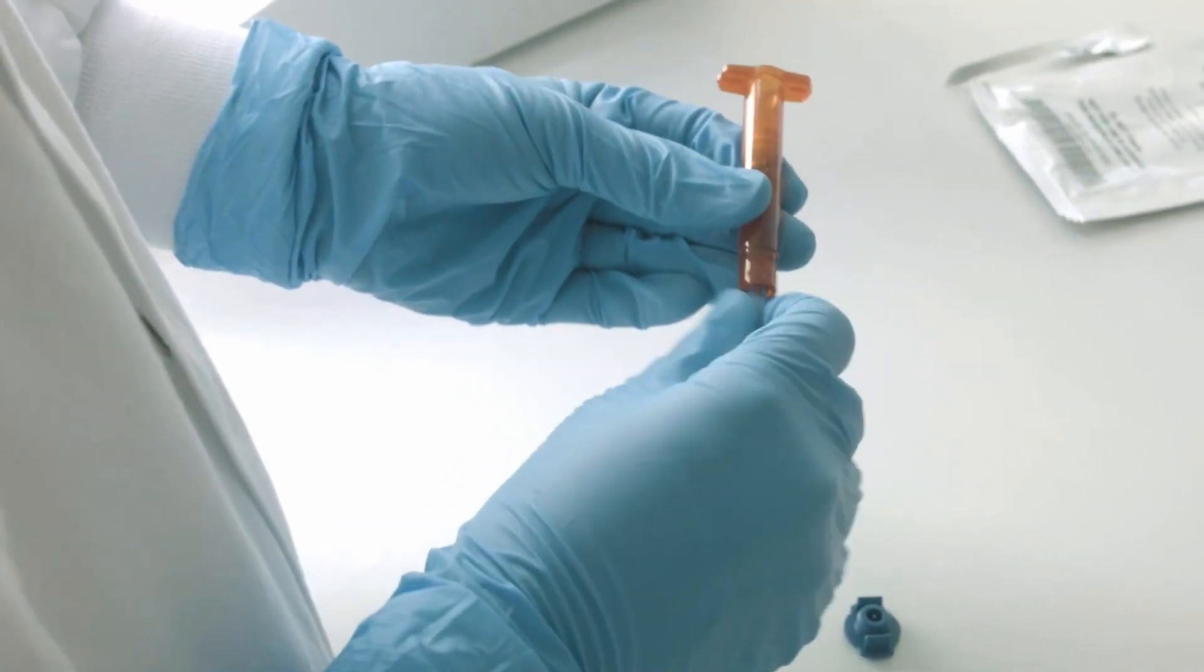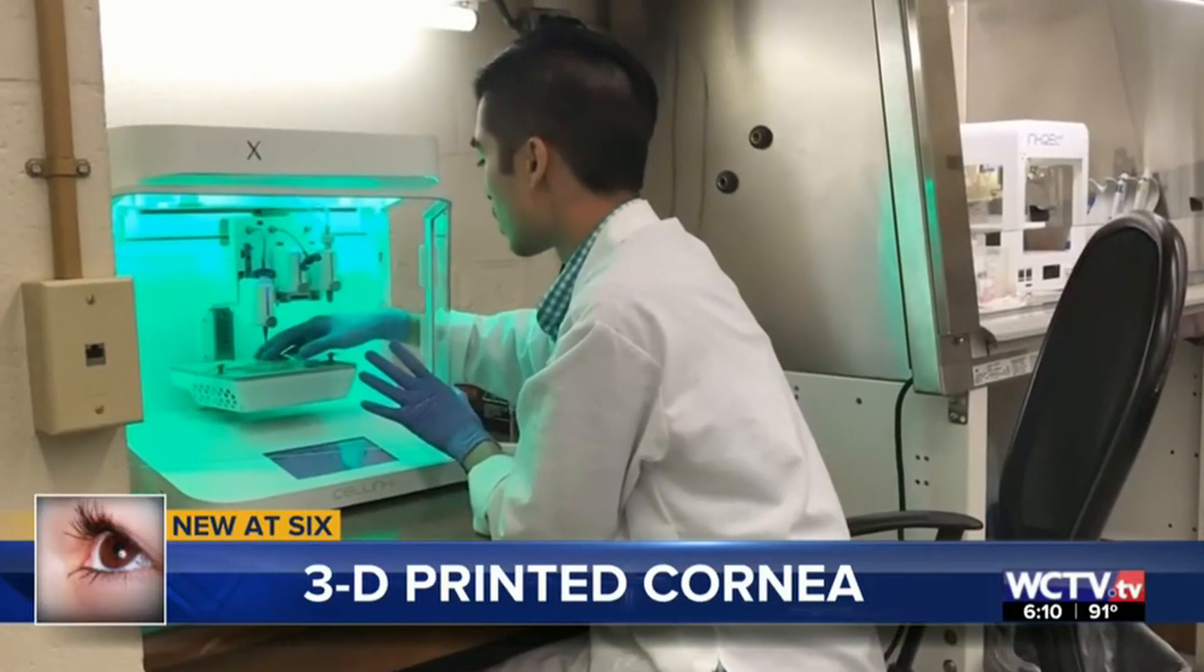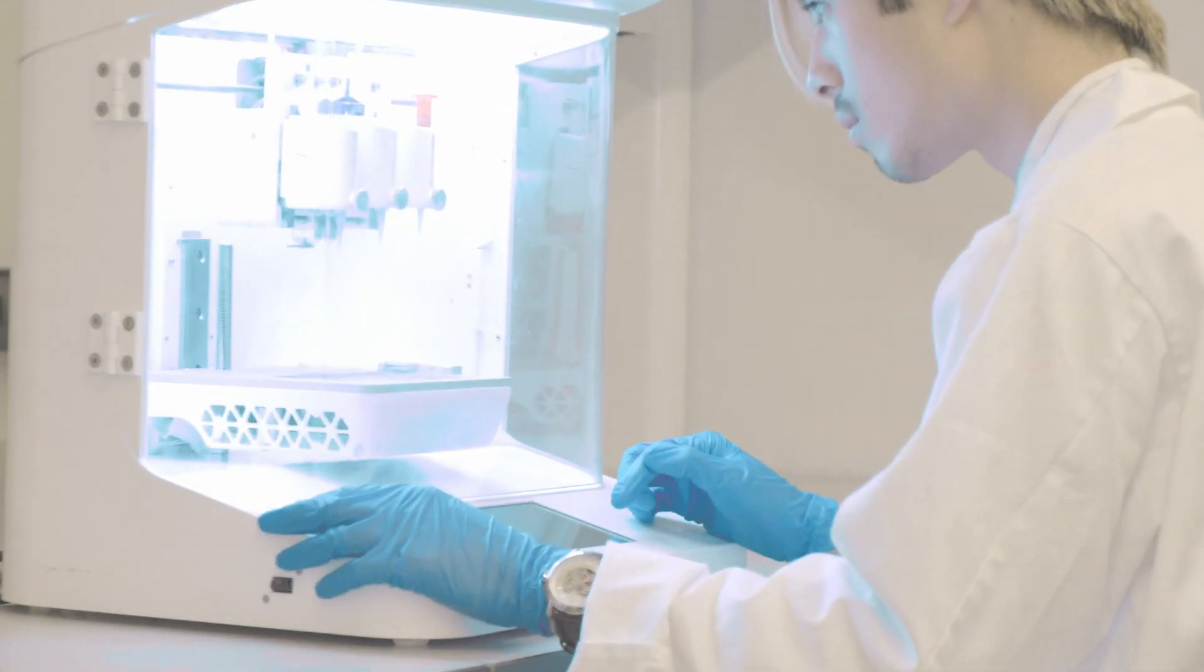The team expanded the existing technology by making a mold that can print a number of corneas. Those corneas can be used to test new products.